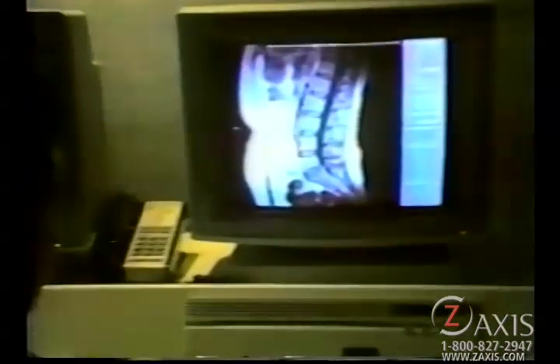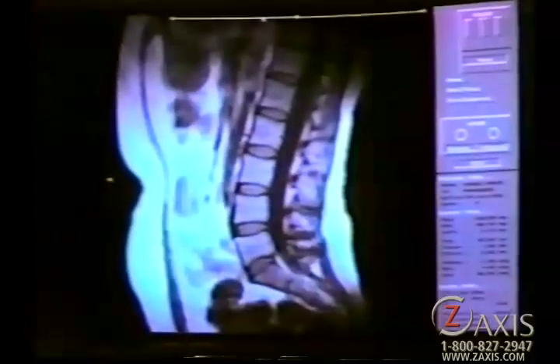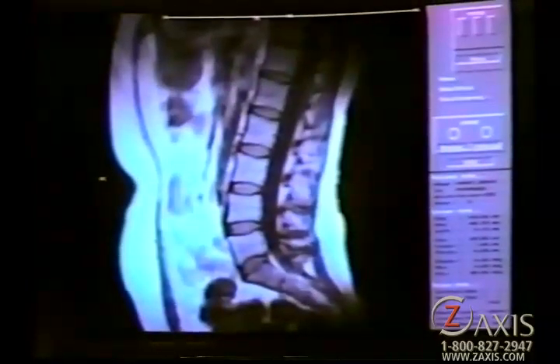In order for the jury to make an informed decision on the technical infringement issues, it was necessary to give them a detailed yet straightforward understanding of how an MRI machine generates images, and specifically for this case, how it generates multiple images at different angles in a single scanning session.